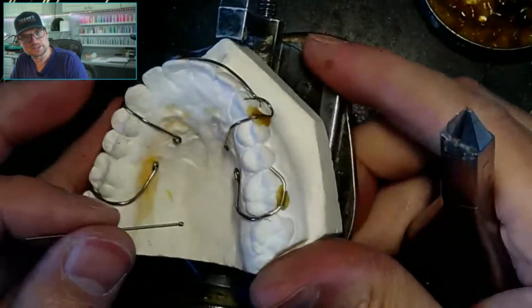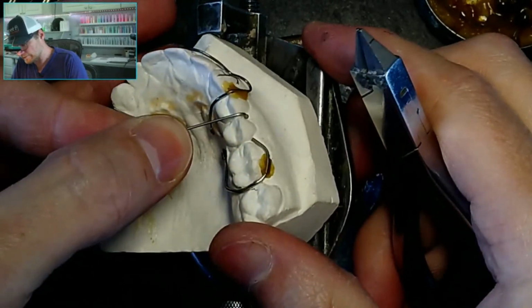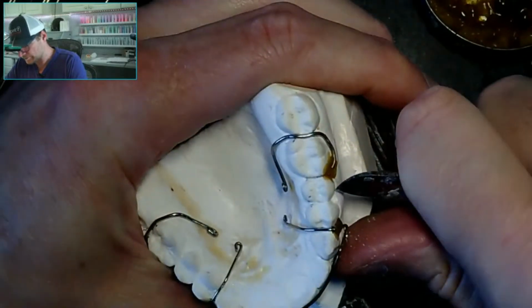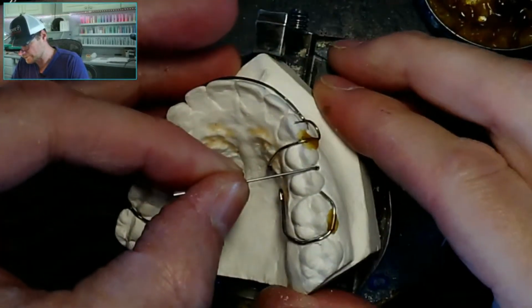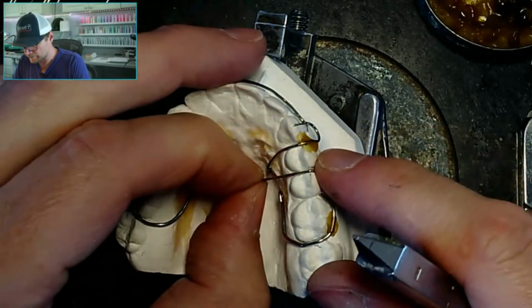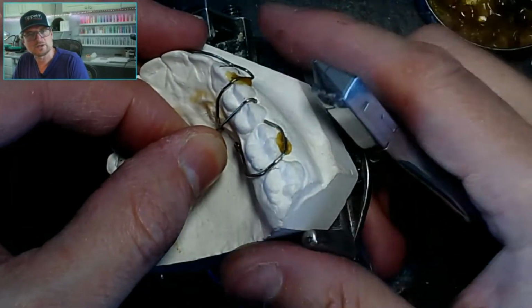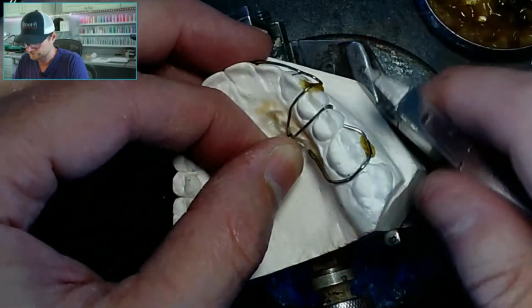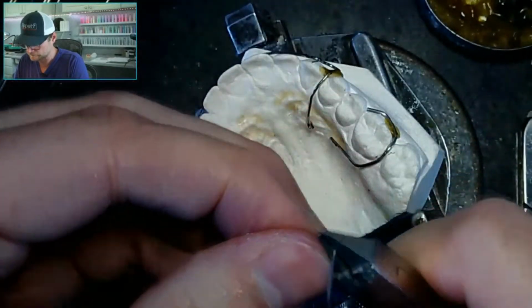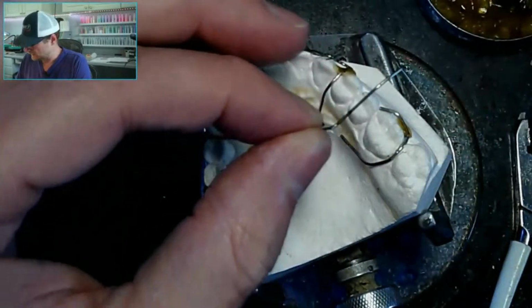So I've already prepped this. I don't know if you can tell. So at a 45. So I'm going to bend it over. Actually, they prepped that a little bit deeper now that I look at this. This one, so I'm still pretty much at a 45 here. Y'all can see that. I'll go ahead and cut that.